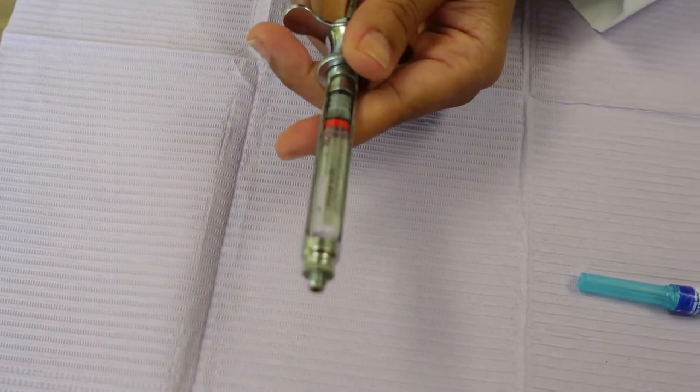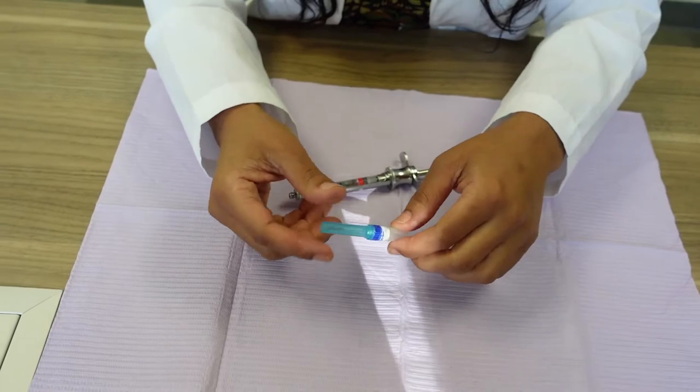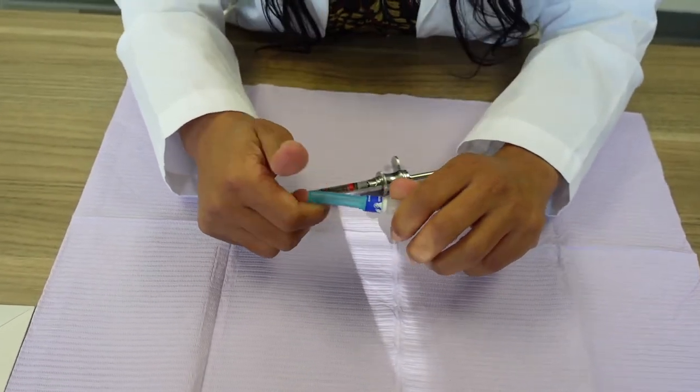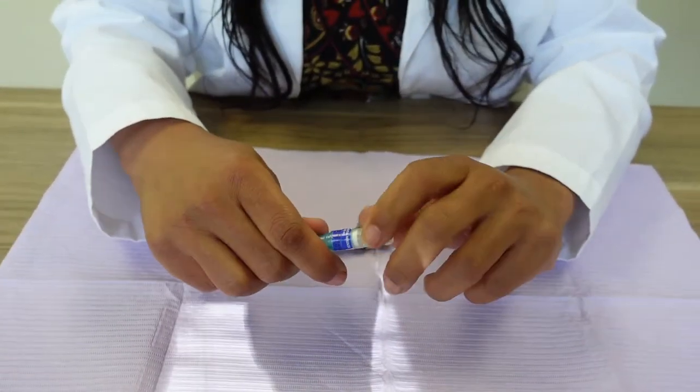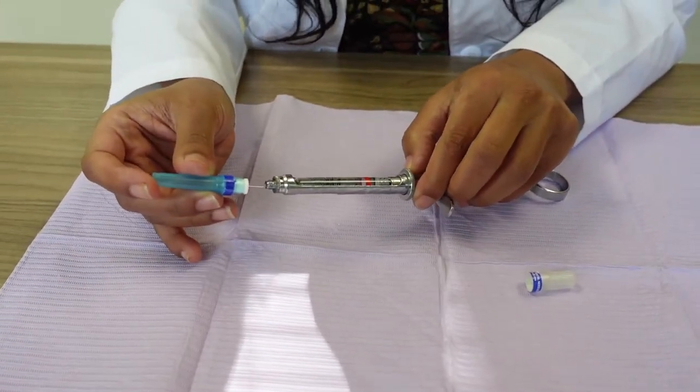So this is just a demonstration. Now we're going to take this - this is a short needle - and I'm going to be extra careful. Always be really careful.